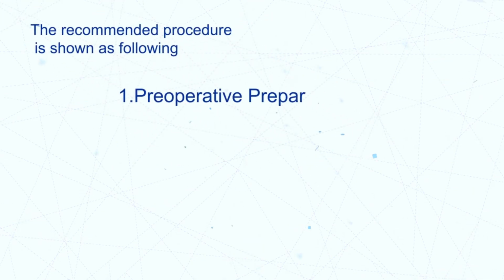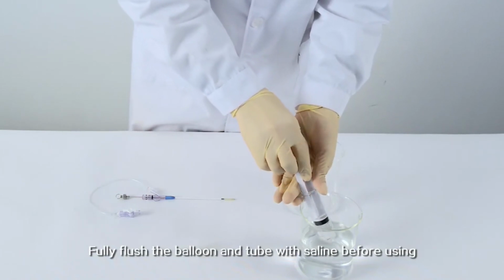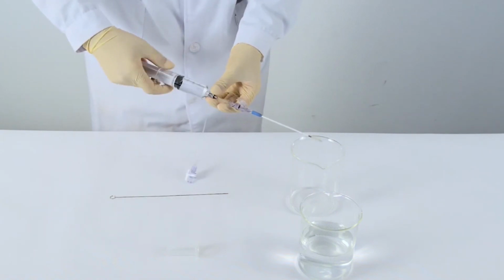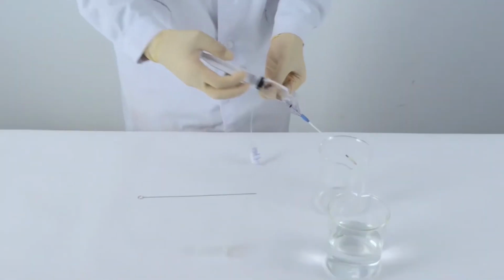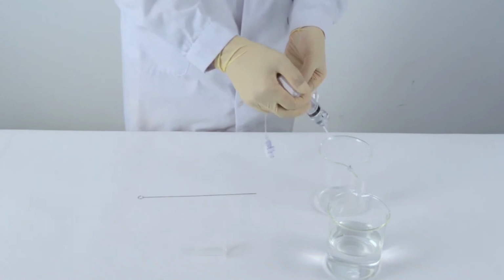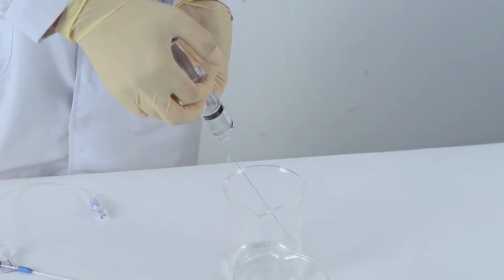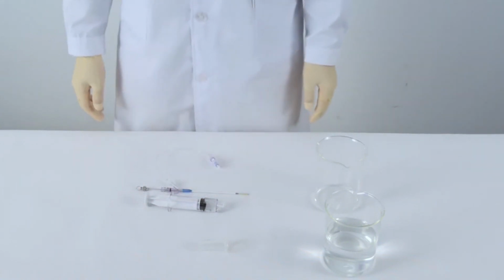1. Preoperative preparation. Flushing. Fully flush the balloon and tube with saline before using. Venting balloon.